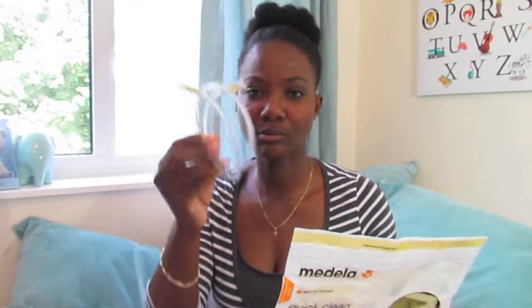Through my research I've heard that the hose can warp depending on how you sterilise it, so be careful. Just check out the guidance on sterilising the pump hose — I don't think you should do it on the stovetop, but I'm not entirely sure because I haven't been pumping in a while.